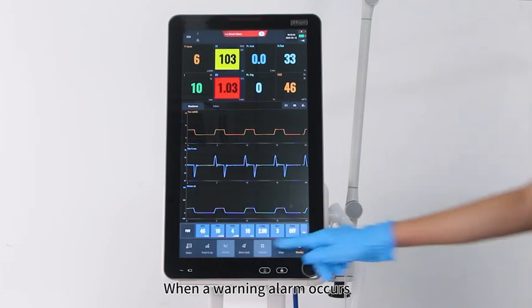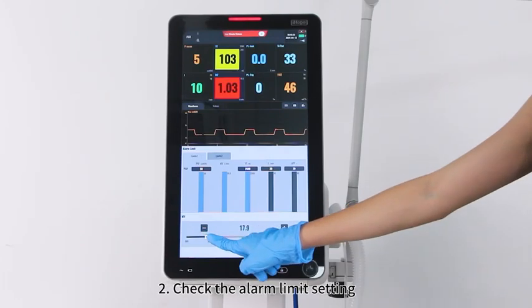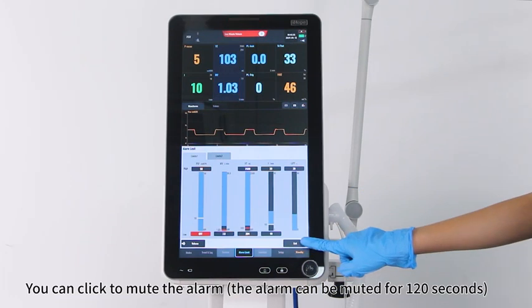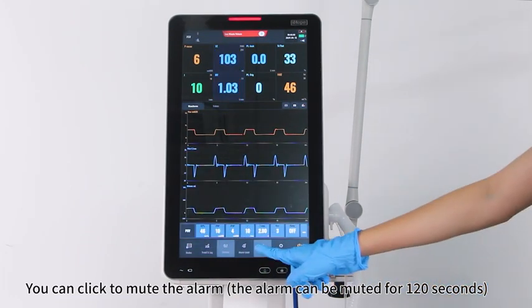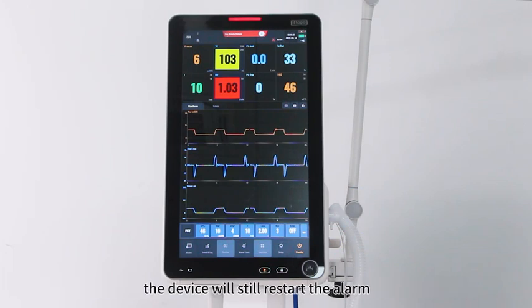When a warning alarm occurs, confirm that the patient has no problems. Check the alarm limit setting. You can click to mute the alarm. The alarm can be muted for 120 seconds. If other alarms occur during the 120 seconds when the alarm is muted, the device will still restart the alarm.